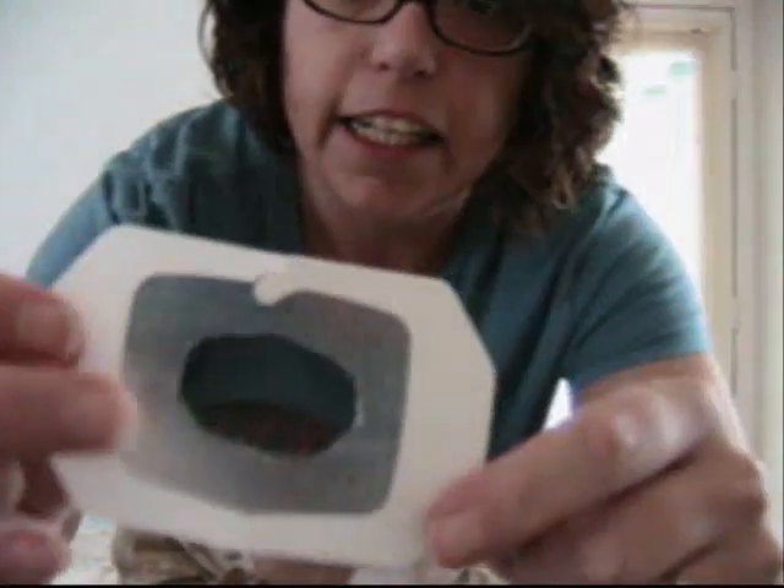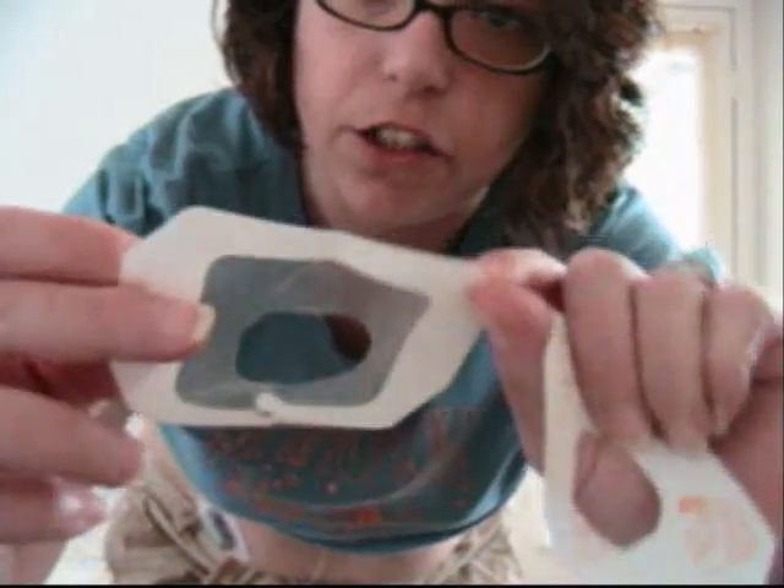You can see here the film, and that's what's going to stick to you. Another option is Skintac wipes. They also have another product called Mastisol, which is a liquid — it's super gummy, so you put it on there and it's really going to stick well. I don't care for these personally; they irritate my skin, so I tend not to go with that.